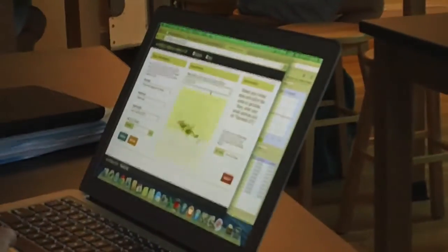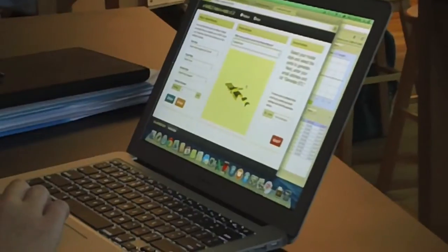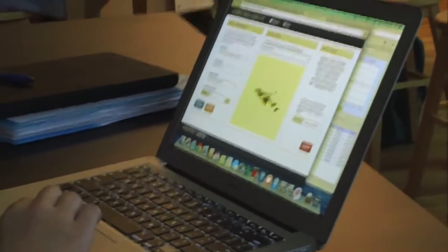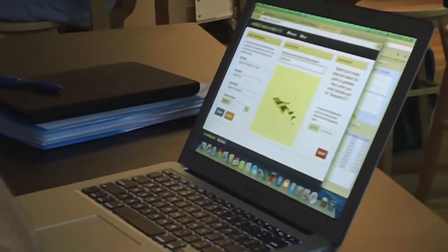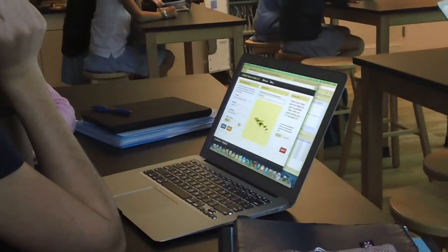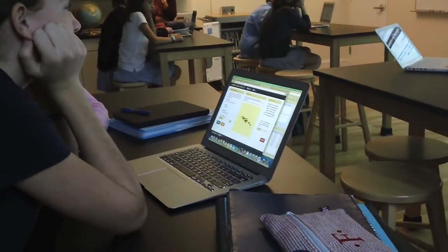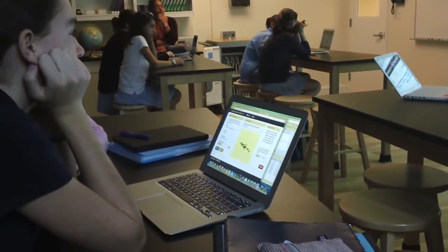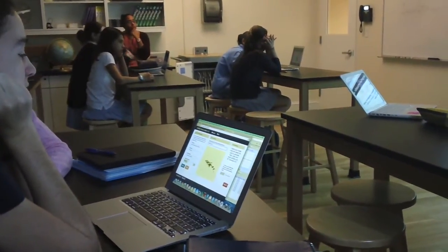The exploded view actually shows us all the different pieces. Remember, each of these are different file pieces that are printing individually. What's cool about that is that if we do want to include some customization — which we'll talk about much more tomorrow — we can do that. We don't have to change an entire hand if we wanted to just put initials or something fun on the top of the hand.